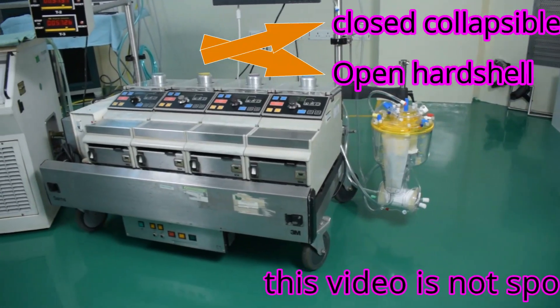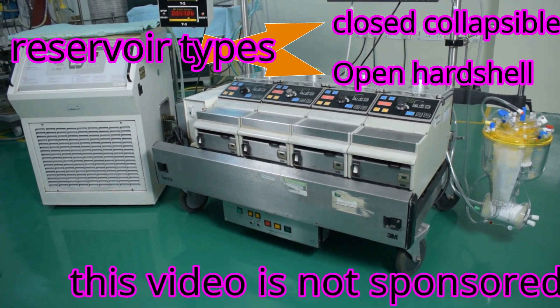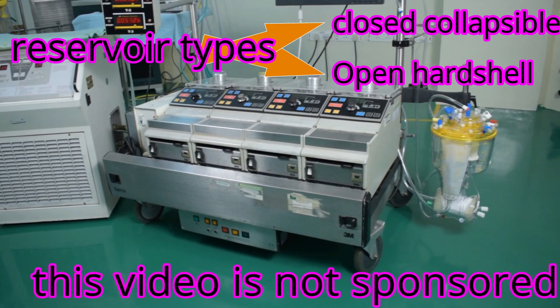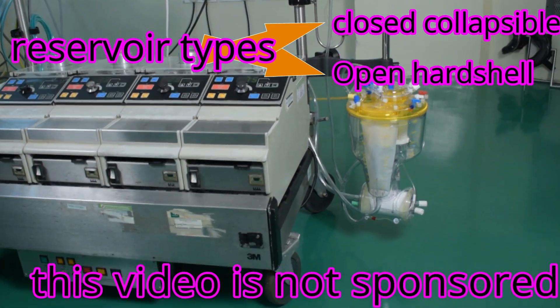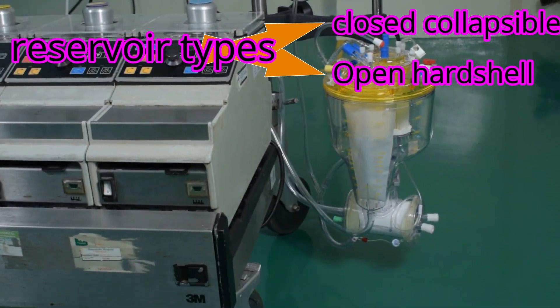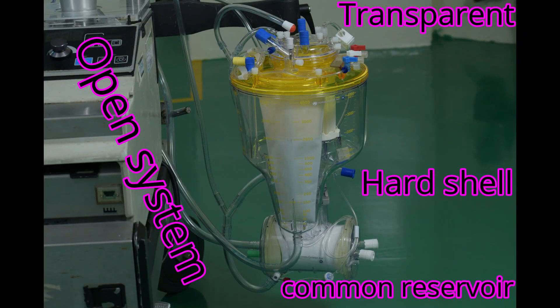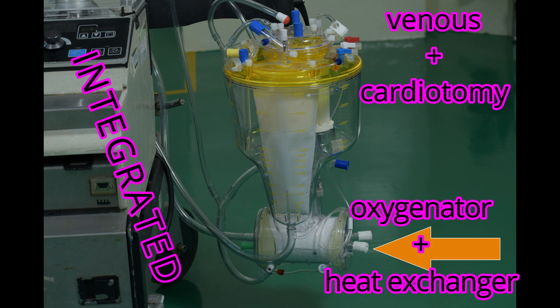Reservoirs are of two types: the closed collapsible type and the open hard-shell type. The reservoir, also called the atrium, is a chamber that receives venous blood from the patient, and also from other sources like the cardiotomy and the vent.